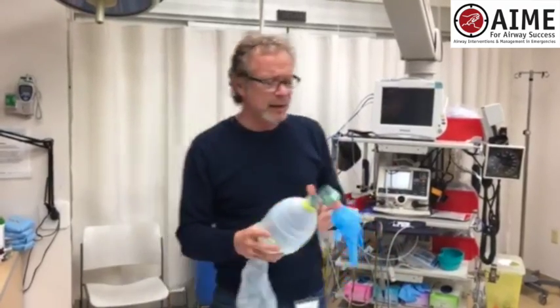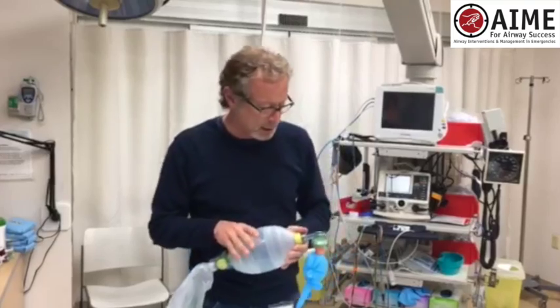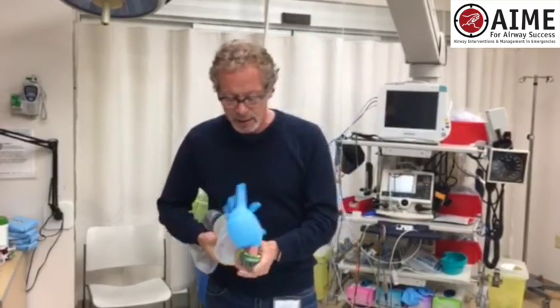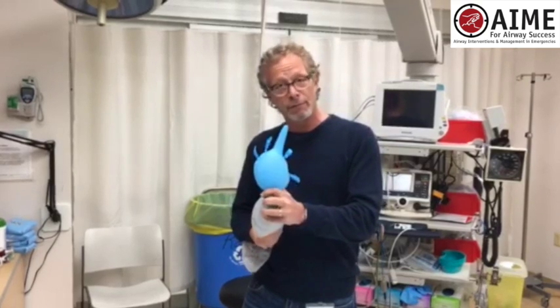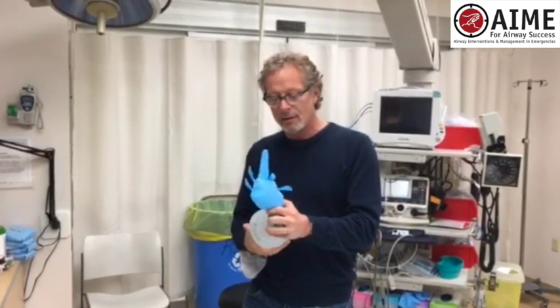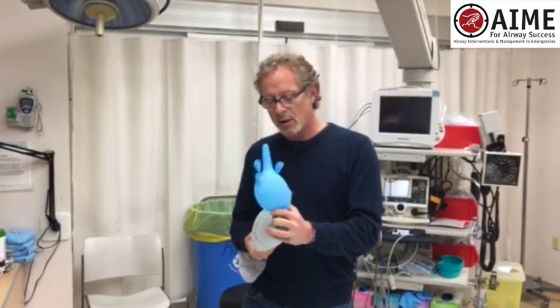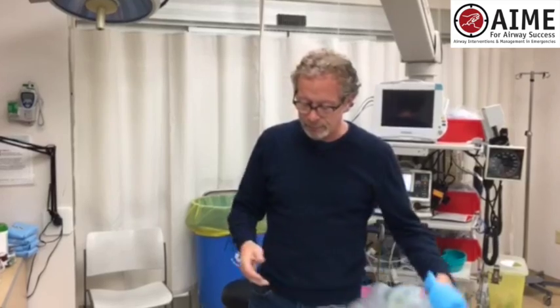So let's look at bagging a patient without PEEP. What you're going to see is the alveoli inflate and give you the finger, and then they're going to collapse. So that's with no PEEP and fairly aggressive bagging.